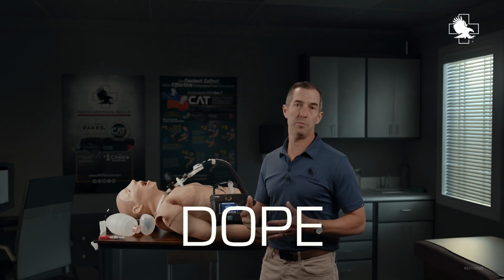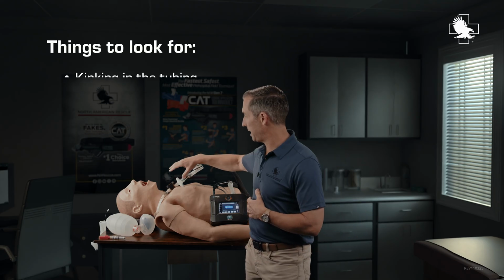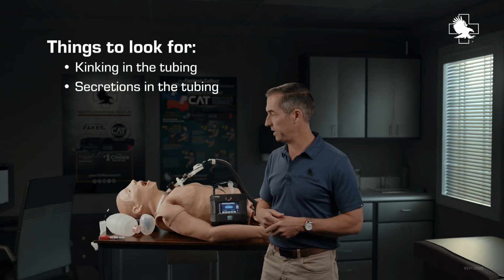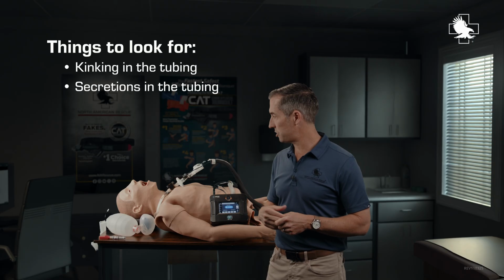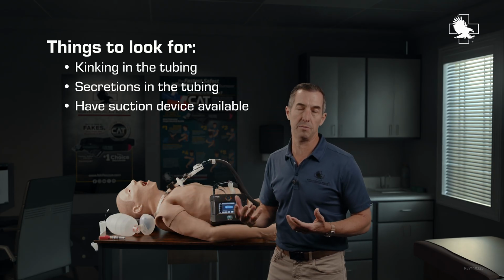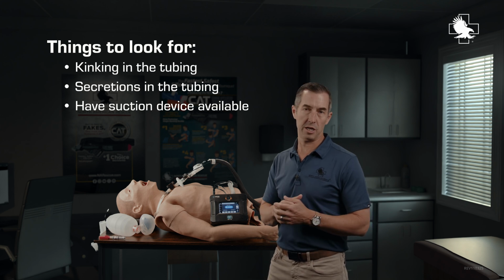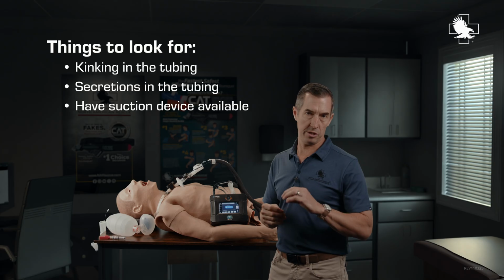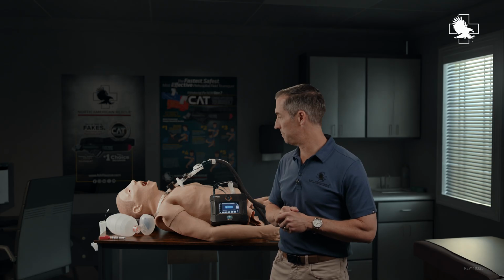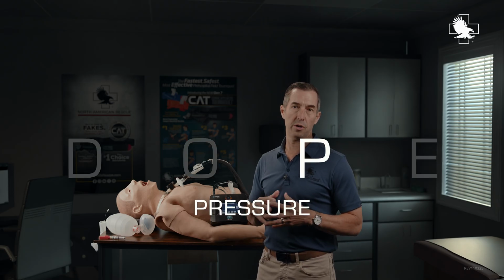The O in the DOPE mnemonic stands for obstructions. So obstructions, I'm going to look for any kind of kinking in the tubing. I'm going to look for any kind of secretions in the tubing, and then I'm going to suction those out. So along with the equipment that I've shown you here, you want to make sure that you have some kind of a suction, even if it's not a mechanical electric suction. Even if you just have a squid suction, you can hook that to some IV tubing and still clear out an endotracheal tube.